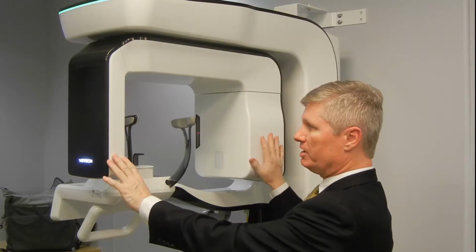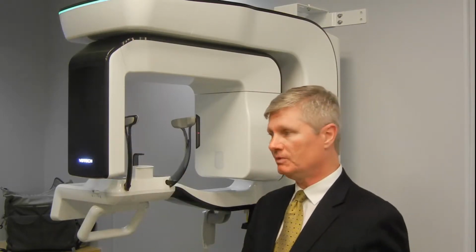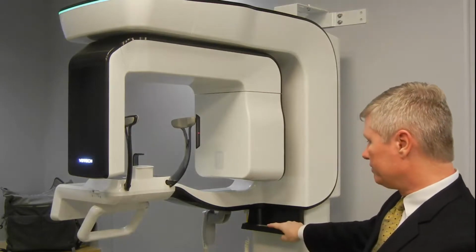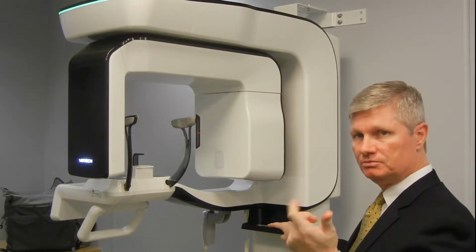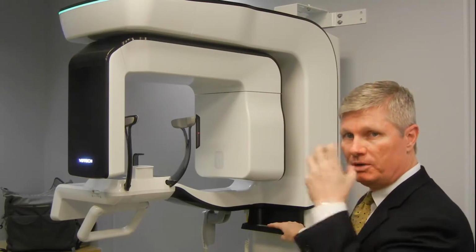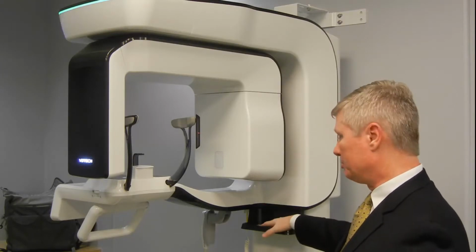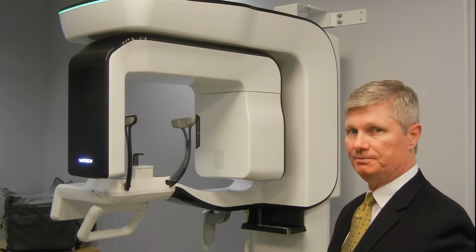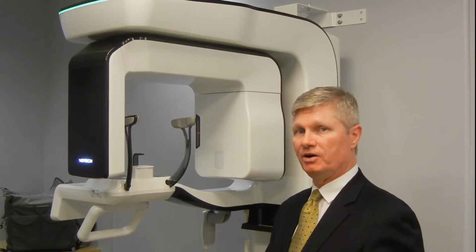The X-ray tube we saw on the right-hand side, with a sensor along the left-hand side, will rotate around our patient. And then immediately to my right, we have our tray, which we can use for jewelry, such as earrings, necklaces, eyeglasses, as well as other metal or dental appliances that can be removed during image capture itself, and can be placed in this tray along the right-hand side. And that covers the major components for the patient side of our imaging system.